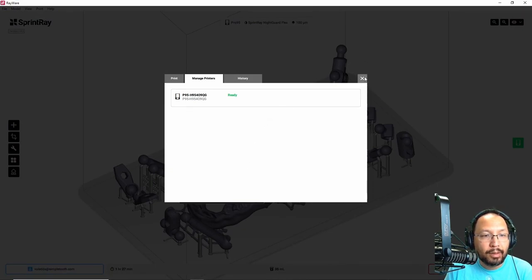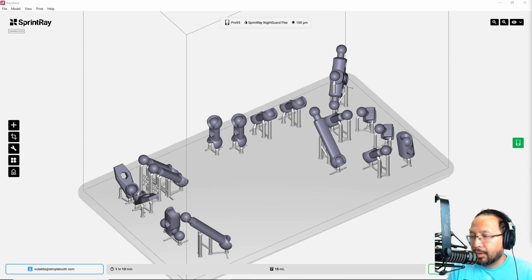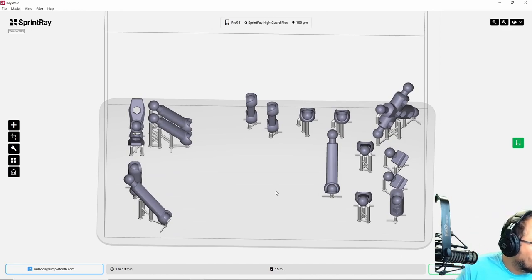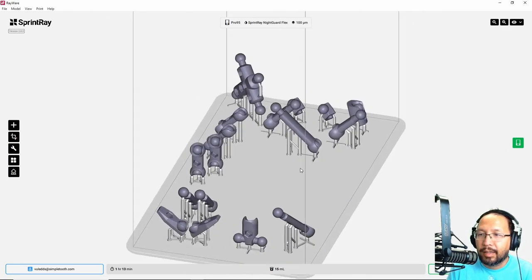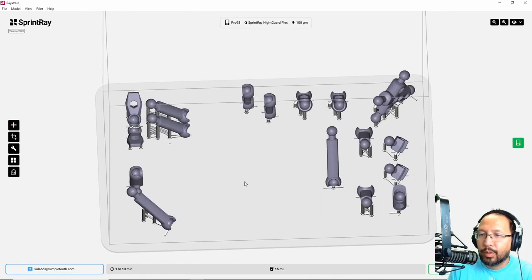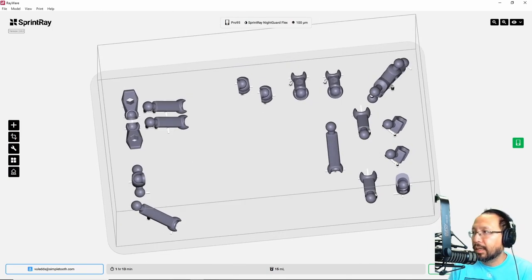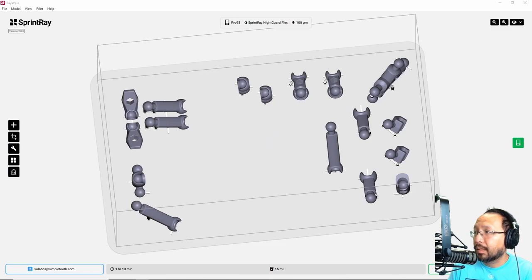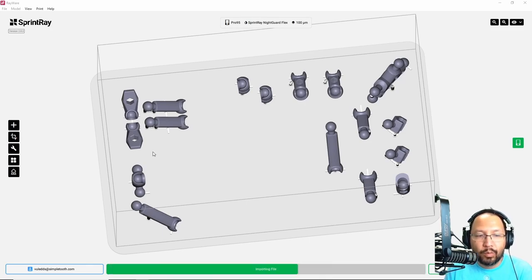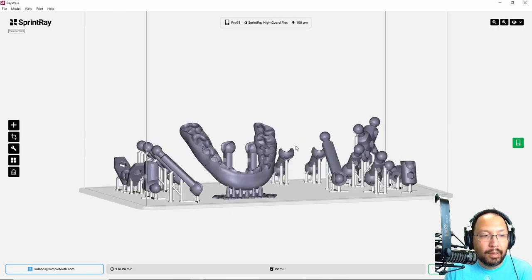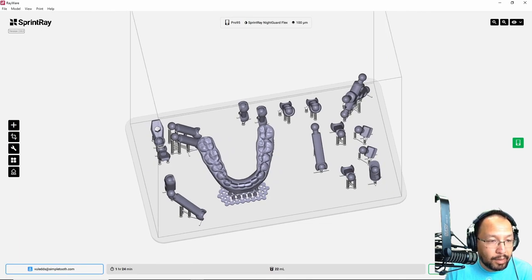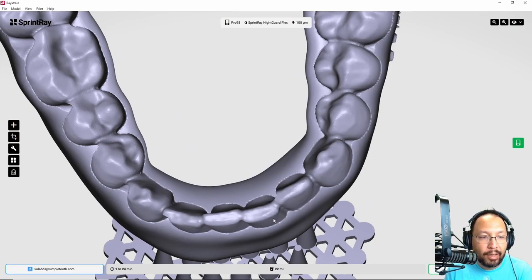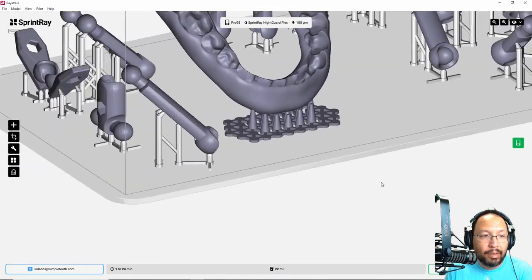So we're going to go back to here on my RayWare. And you'll notice on my RayWare that I have some stowaways. This is actually an action figure that I'm printing out as a side project. So we're going to leave him here because I want to make another copy of him. We're going to go ahead and drag and drop this night guard into the system. So I'm going to drag and drop from my Windows Explorer. You could also use the add button here that works as well. Okay. And so we have a consolidated print right here. One thing you can double check, double check your intaglios, make sure that you don't have any pegs sticking out here. If it is, it'll ruin your night guard real quick. And I have this ready to go.